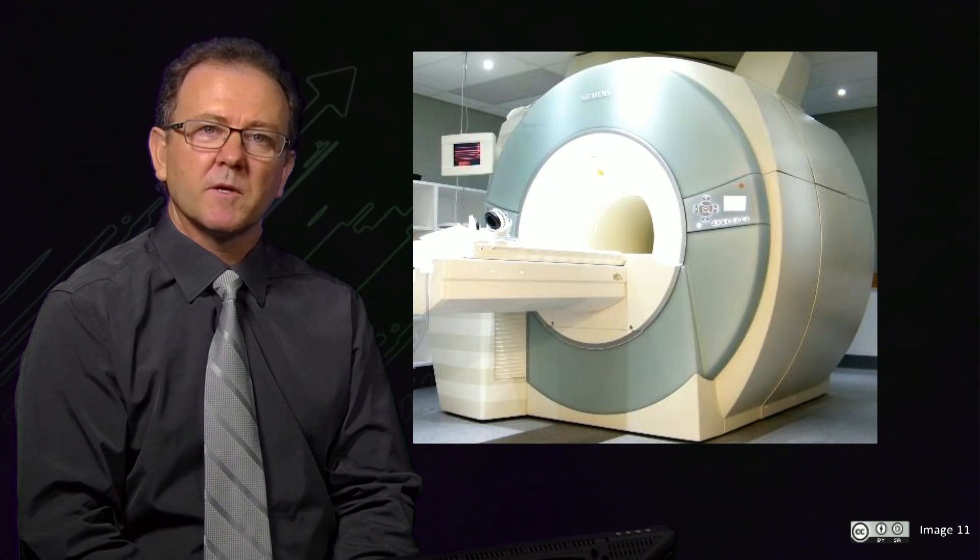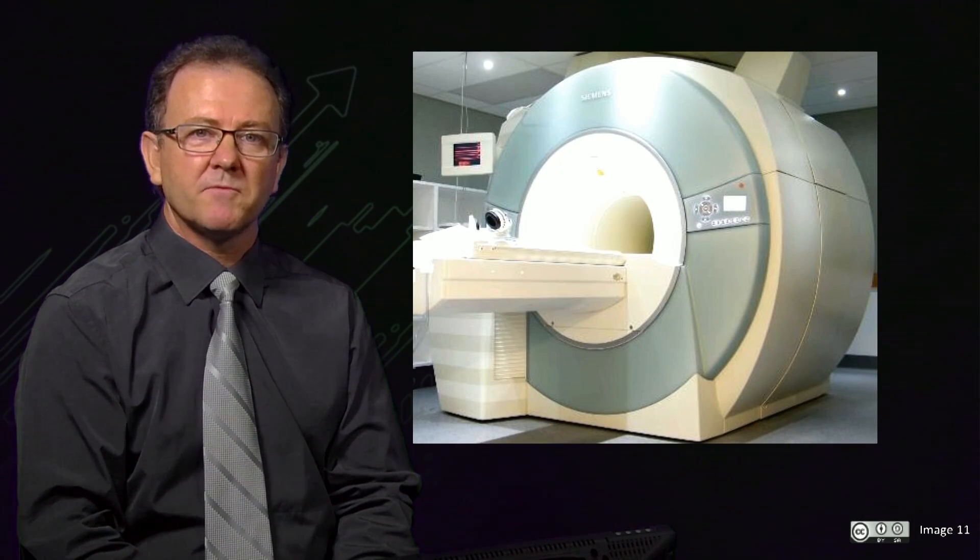We will also describe the construction of the MRI scanner itself, and some of the factors we need to consider for its safe operation.